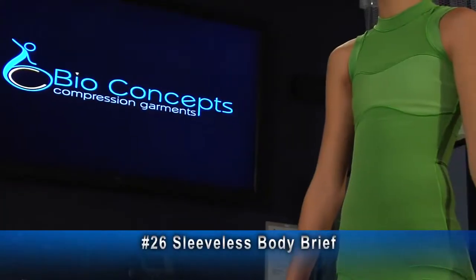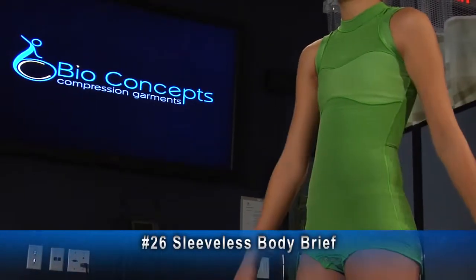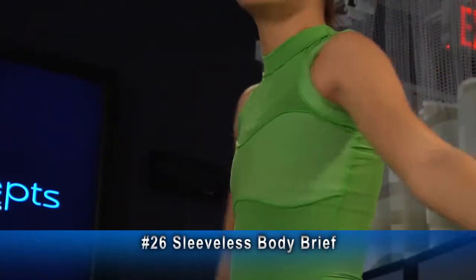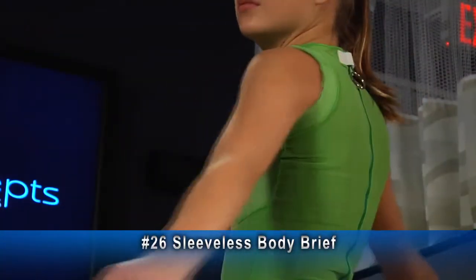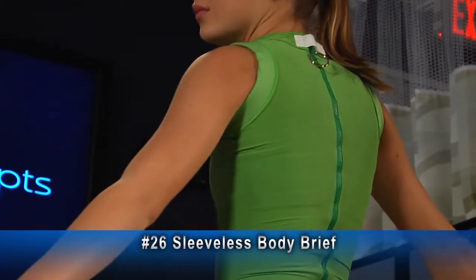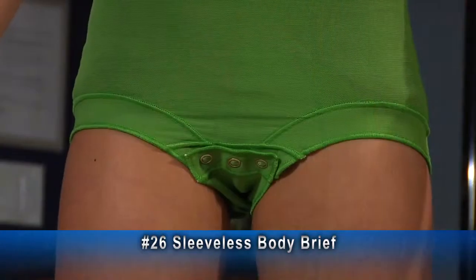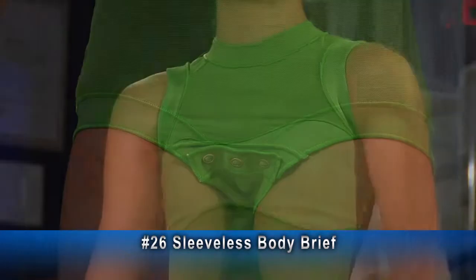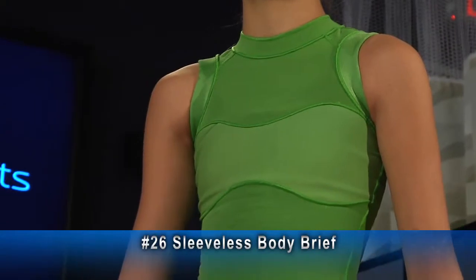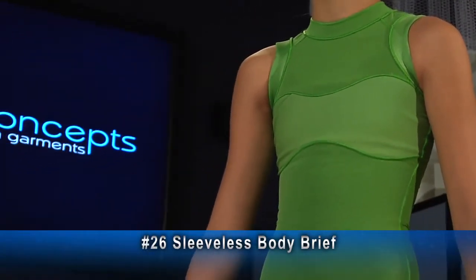Here is an example of a number 26, a body brief. Shown here are draped axilla linings, which make the armholes much more comfortable, along with a snap crotch and breast inserts instead of the default breast cups.